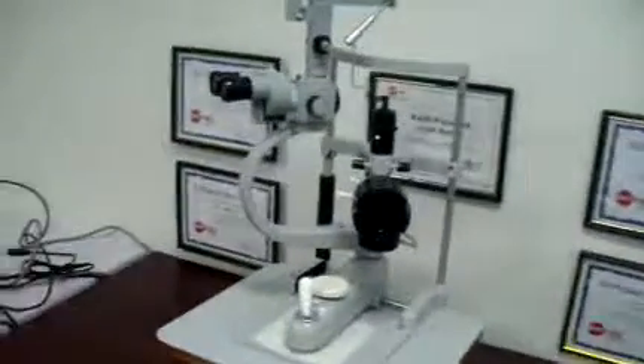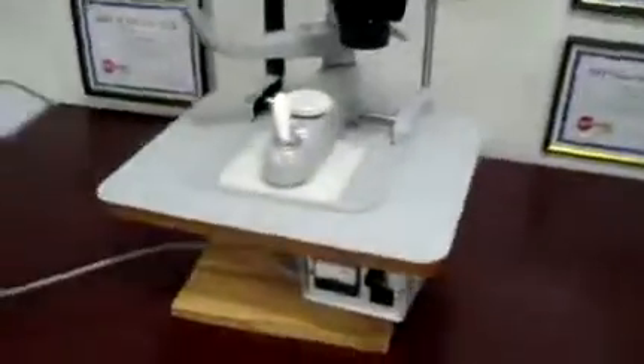It's DCSP Medical. We're looking at a Zeiss F125 slit lamp. It does come with a Haag Streit tonometer.